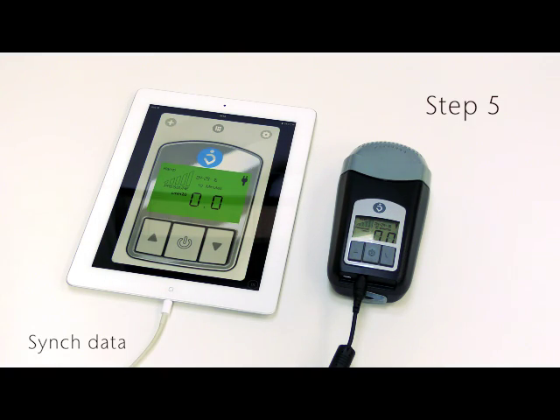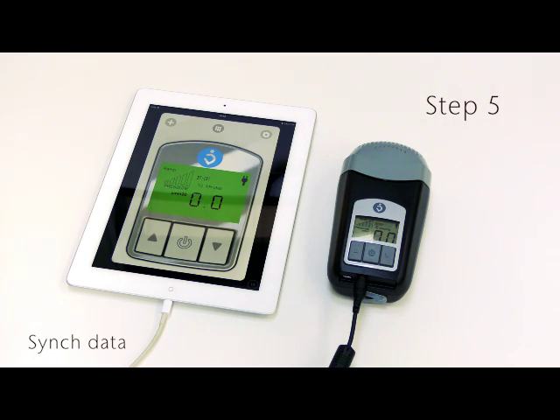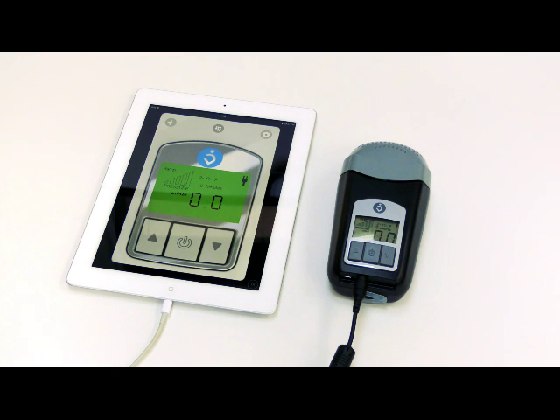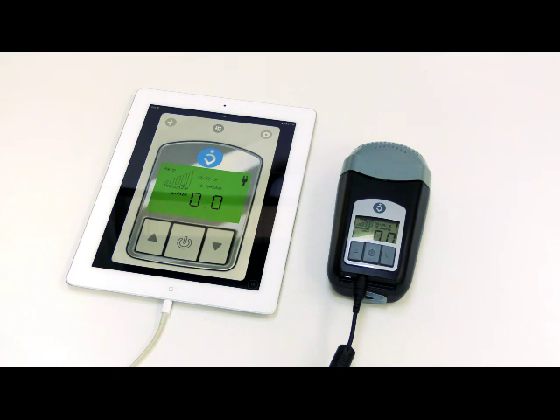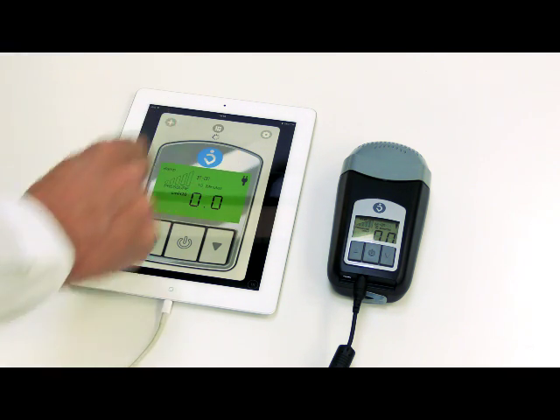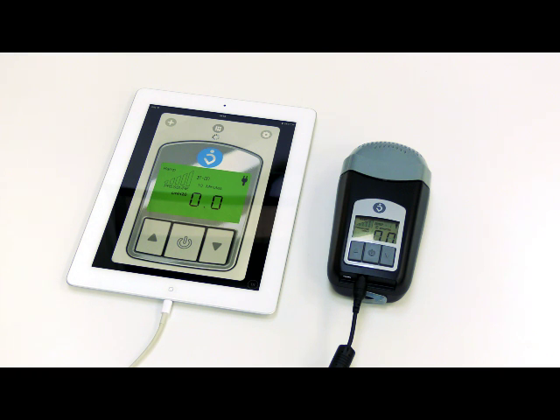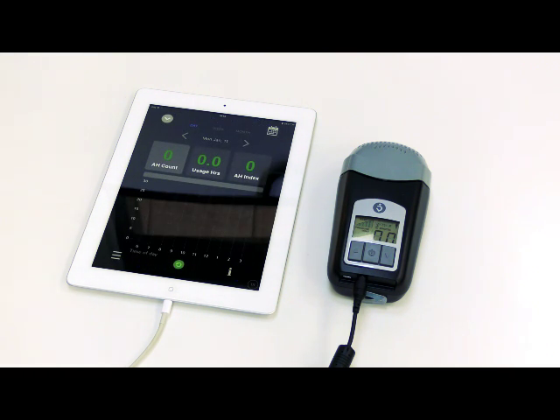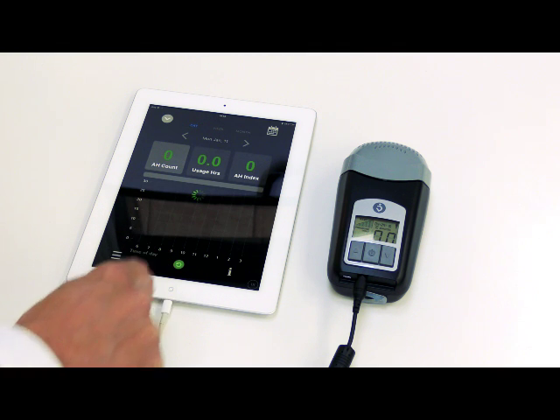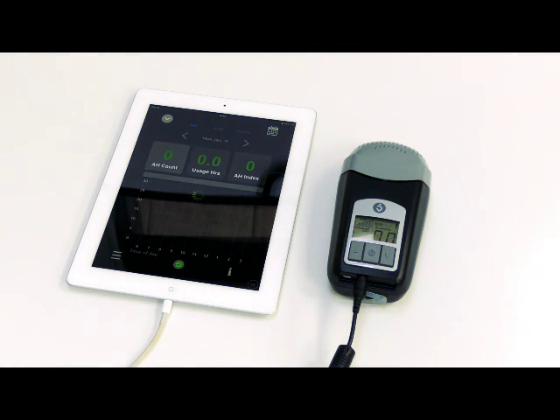Step 5: Sync Z1 to mobile device. Now you are ready to transfer your data from the Z1 to the mobile device. Press the 3x3 square button on the mobile device, then press the green circle on the data screen. Press Close when the sync is complete.